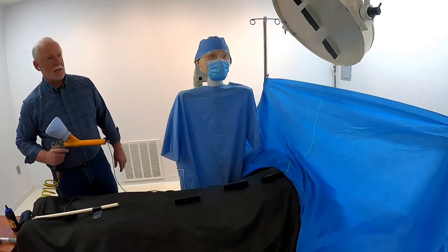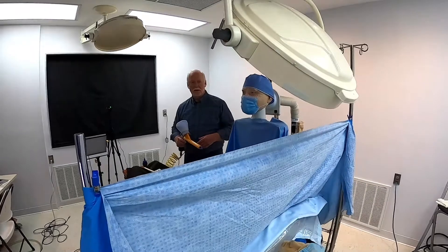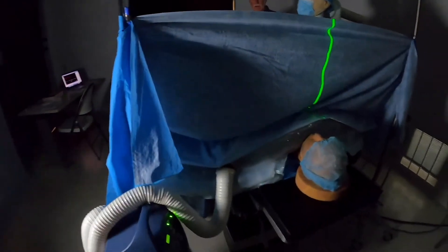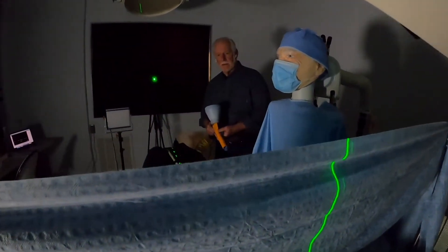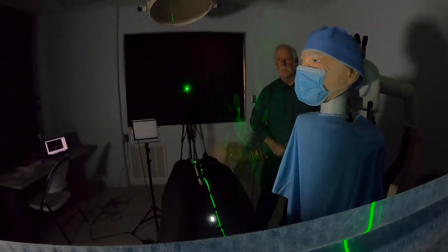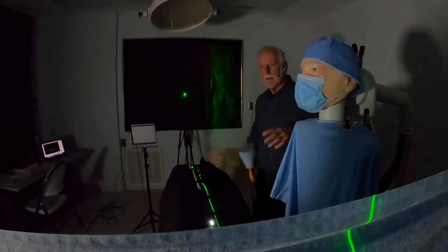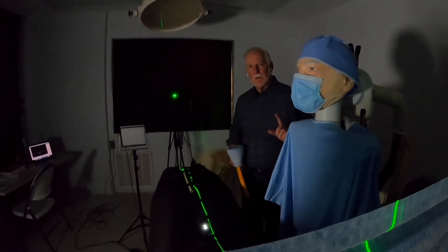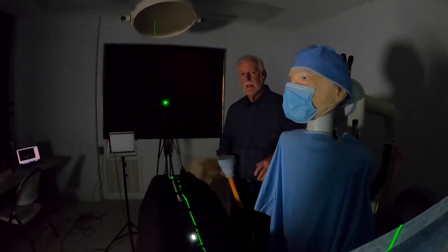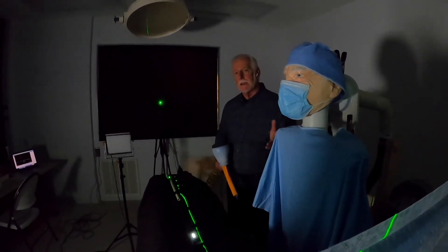You can see that with all the lights on, it's a little difficult to see. So we're going to have the camera swing around, dim the lights a little bit, and make that plane of laser light more of an effect. You can see it swirling around, creating that vortex. Remember that the vortex is the smoke being held in the breathing zone of the staff. And these are big particles — these aren't the little particles that could stay for minutes and minutes. These will stay for maybe two minutes.